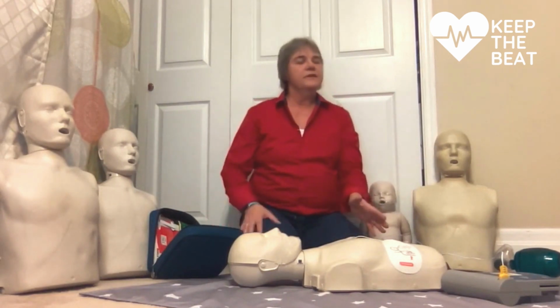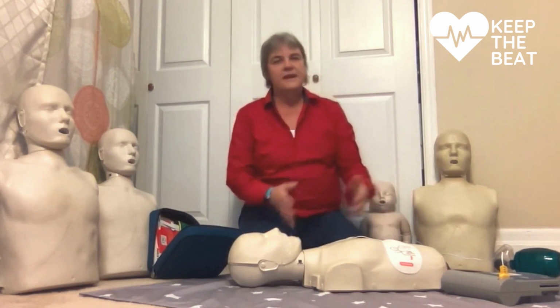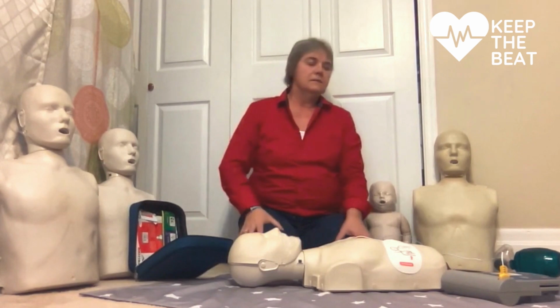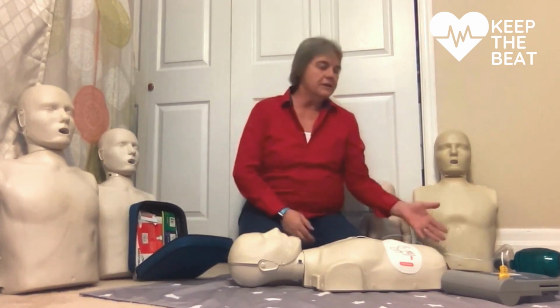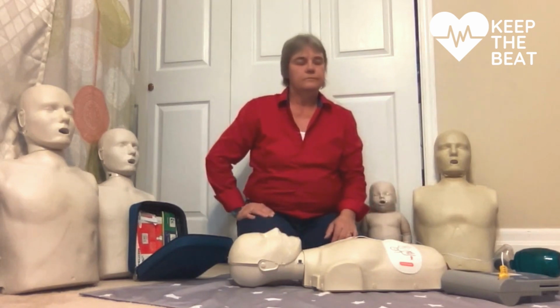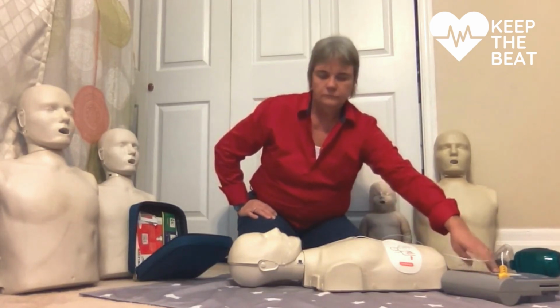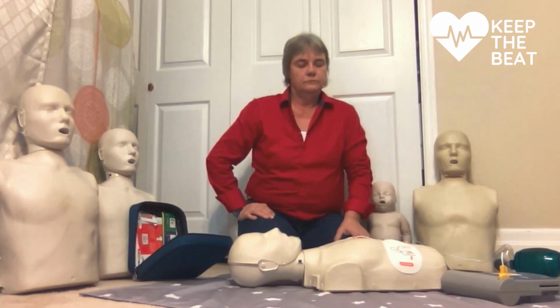The person doing CPR, do not touch the patient. Will now stop, and the AED is analyzing. Shock advised. Charging. I'm clear, you're clear, we're all clear. Deliver shock now. Press the orange button now. Shock delivered. Paused. Begin CPR.